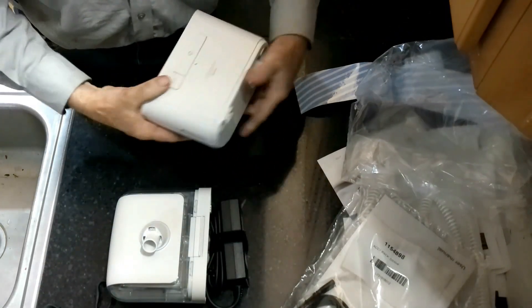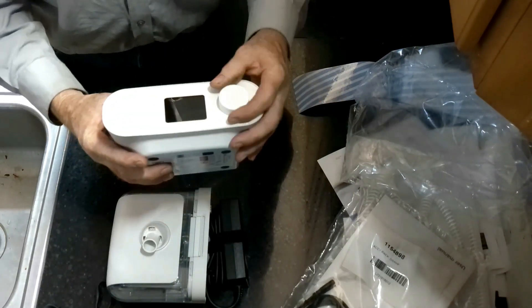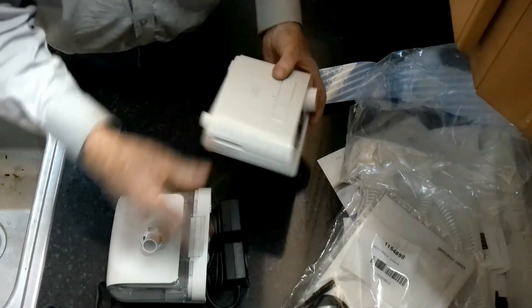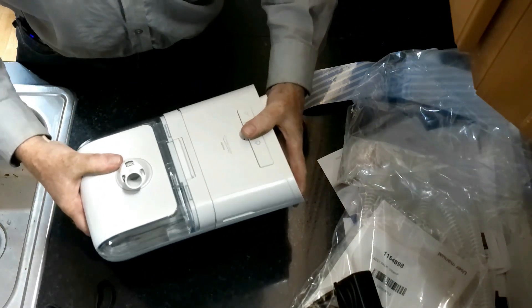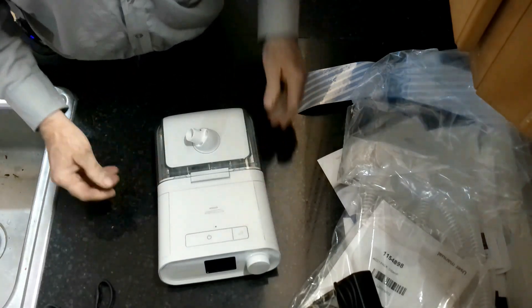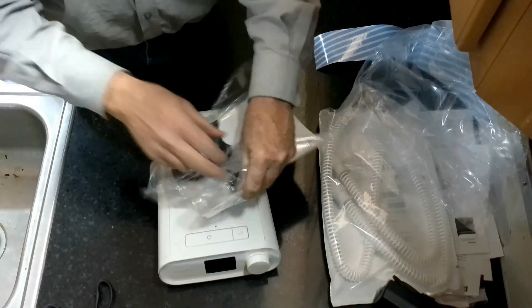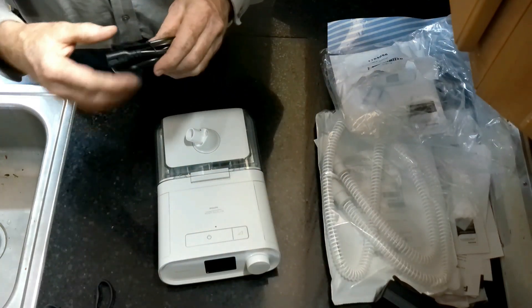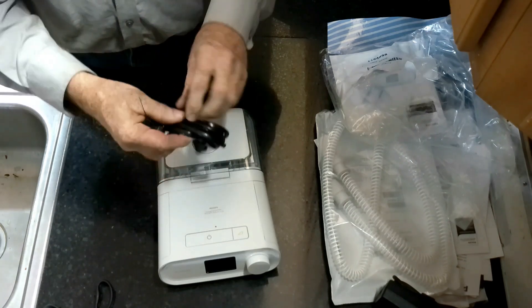This is the actual CPAP here, and I have no idea what this other piece is. Pretty white color. So this is the new CPAP. It has a screen, a knob, and on-off buttons, and it looks like this thing will just mate up to this — so that snaps together. I have not read these instructions. Most of this is going to be intuitive, but I will read the instructions eventually.